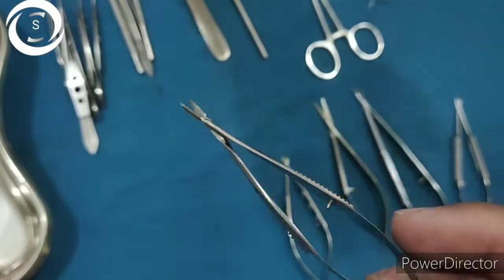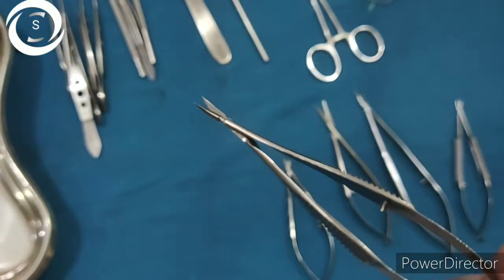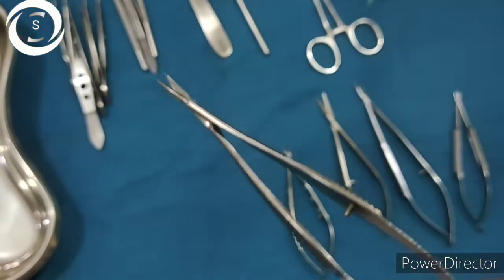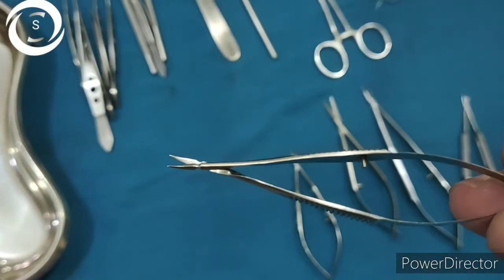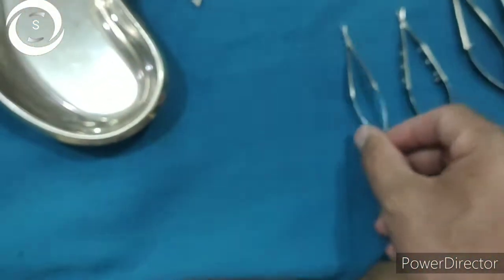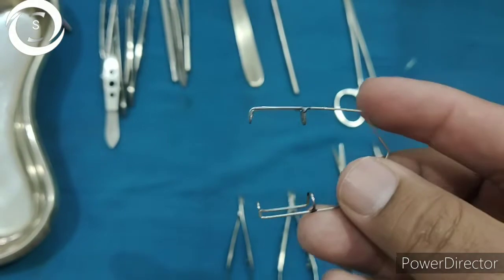This is the smallest cutting scissor, also known as the Vannas scissor. It is a fine, multi-purpose scissor mainly for intracameral use, such as cutting the iris for peripheral iridectomy, cutting the anterior lens capsule, fine suture cutting, lamellar corneal tissue harvesting, and limbal stem cell procedures.